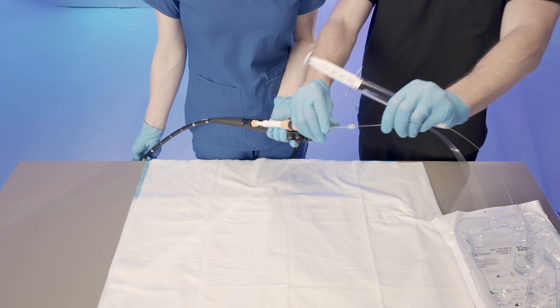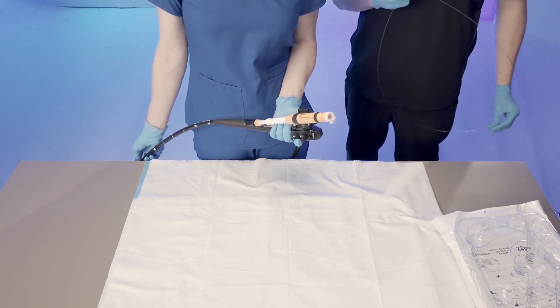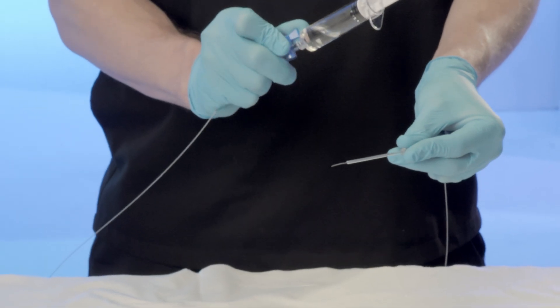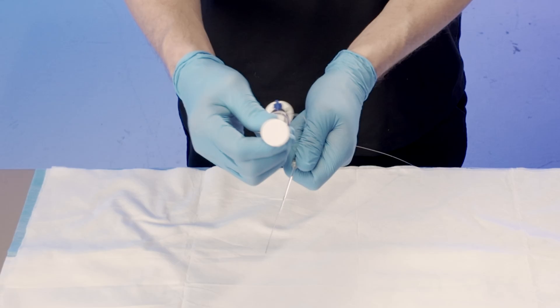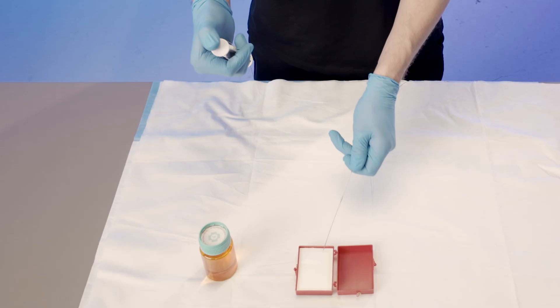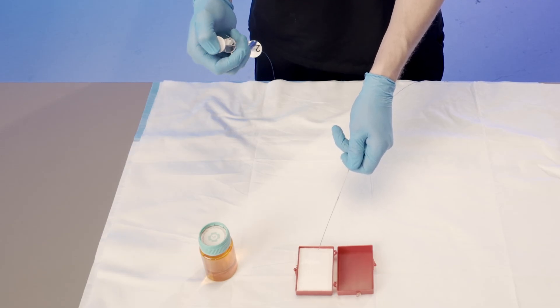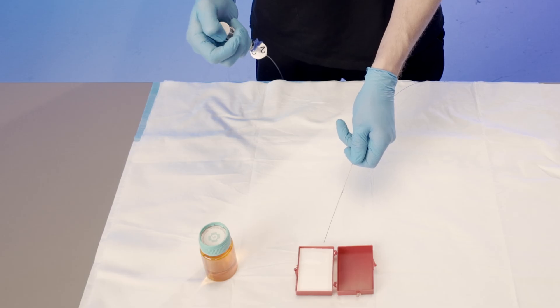Prepare the specimen. Having removed the needle from the device, remove the biopsy aspirate from the needle. Open the stopcock by turning the lever arm until it is parallel to the syringe's long axis. Rotate the plunger counterclockwise and advance it forward to expel the biopsy. Prepare the specimen per institutional guidelines. The remaining biopsy aspirate can be recovered for examination by flushing the device.